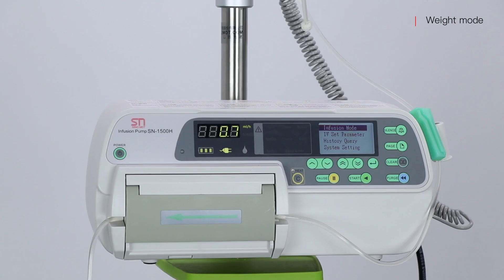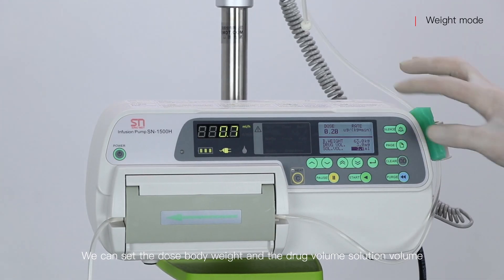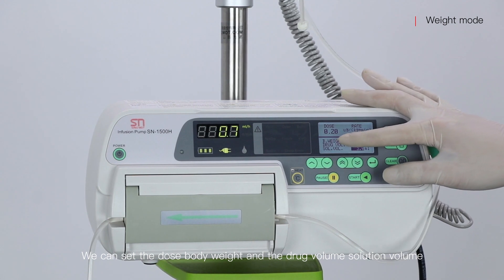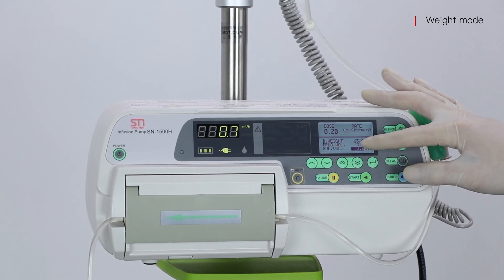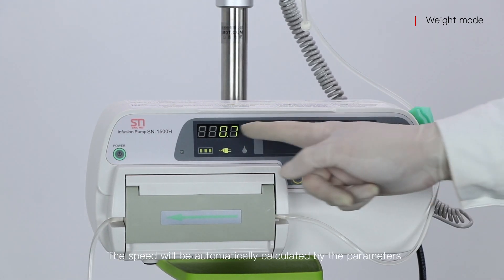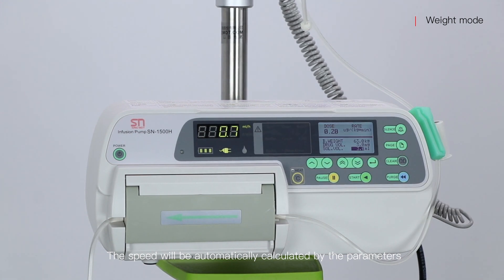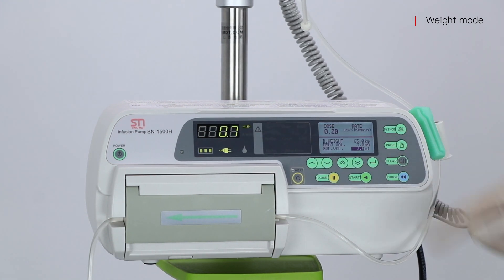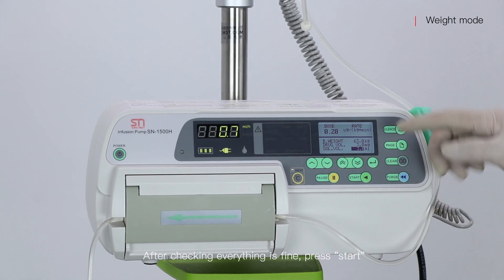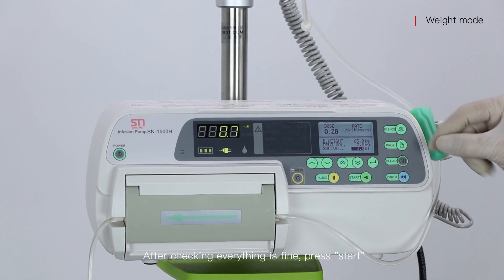We come to Weight Mode. We can set the dose, body weight, drug volume, and solution volume. The speed will be automatically calculated by these parameters. After checking everything is fine, press Start.